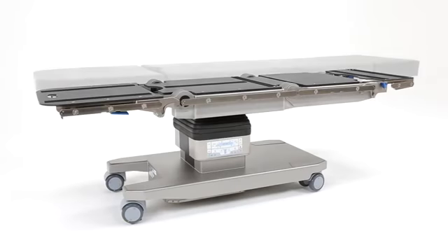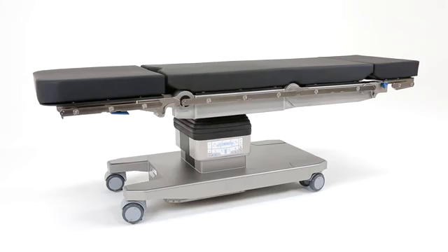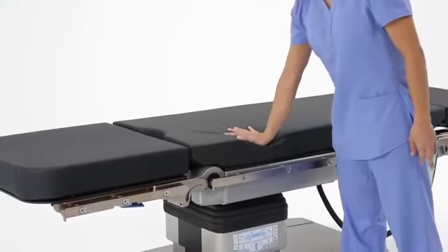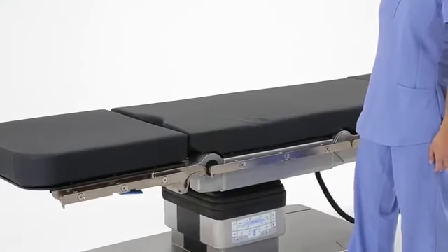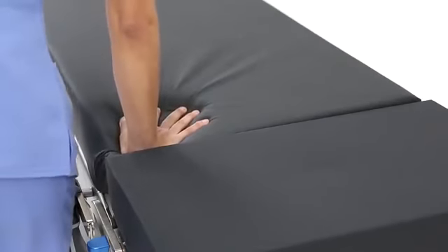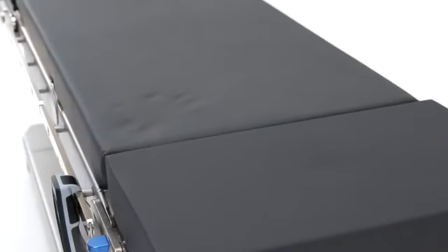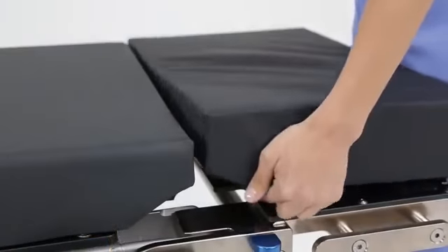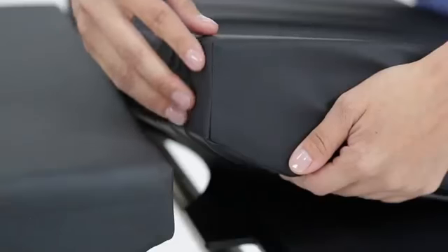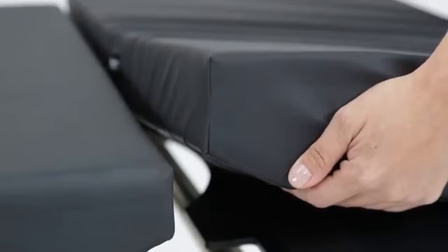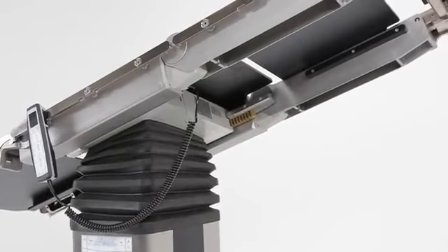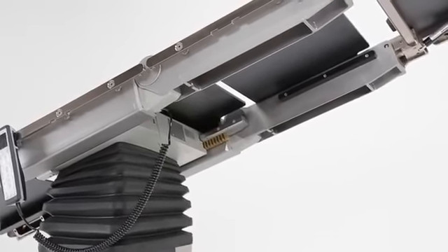On top of the strong foundation and the intelligent column sits a tabletop made of advanced materials and superior design. The safe patient support surface is easy to use for any member of the surgical team. The pads are composed of triple layers of viscoelastic foam, which were carefully engineered to reduce risk of pressure ulcers. These pads feature welded seams for improved infection control. The Trumpf tabletop was engineered to allow you to achieve the most demanding patient positioning applications in the industry.